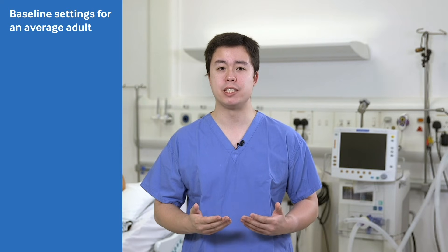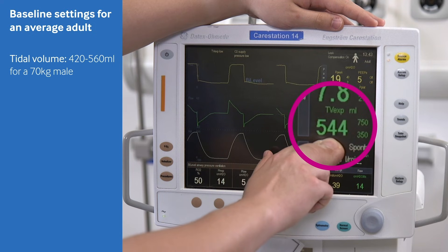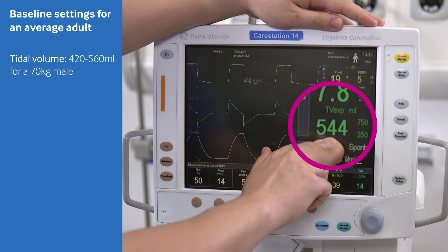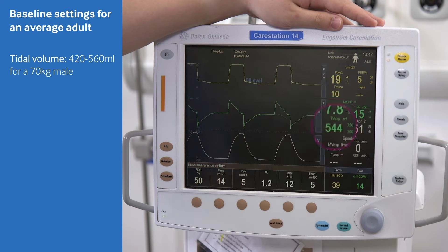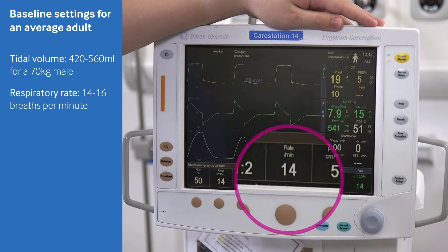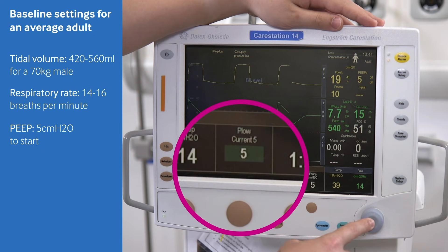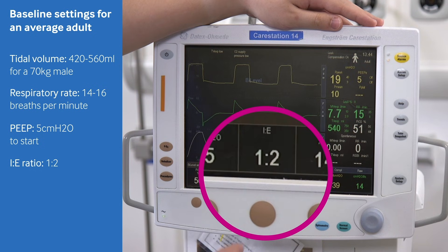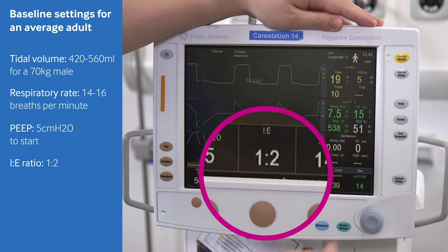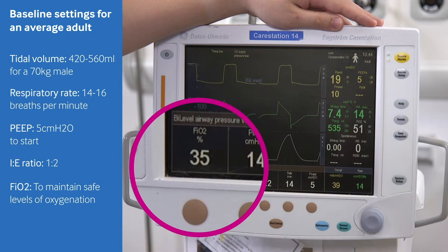For an average adult, the following makes sensible baseline settings for mandatory ventilation in a volume control mode: a tidal volume of 6 to 8 mls per kilo of ideal body weight — around 420 to 560 mls for an average 70 kg male; a respiratory rate of 14 to 16 breaths per minute; a PEEP of about 5 cmH2O as a safe starting point; an I:E ratio of 1:2; and your FiO2 set to whatever is appropriate for your target saturations.